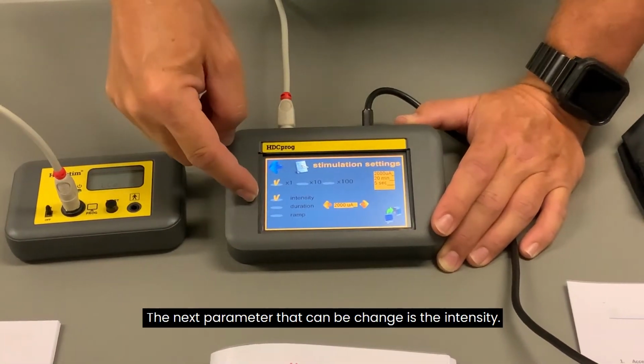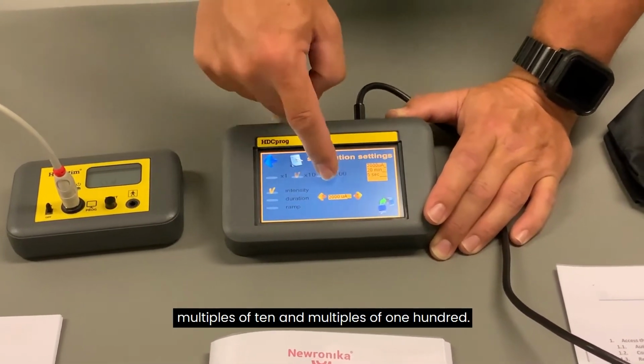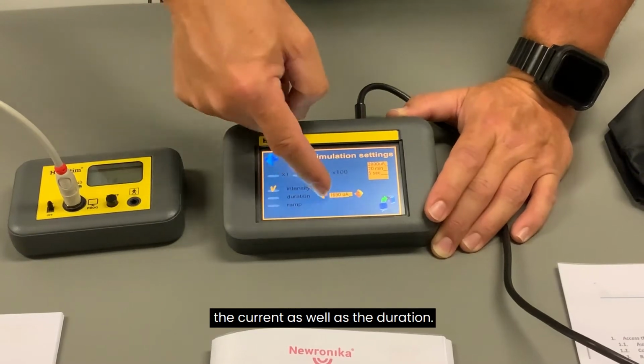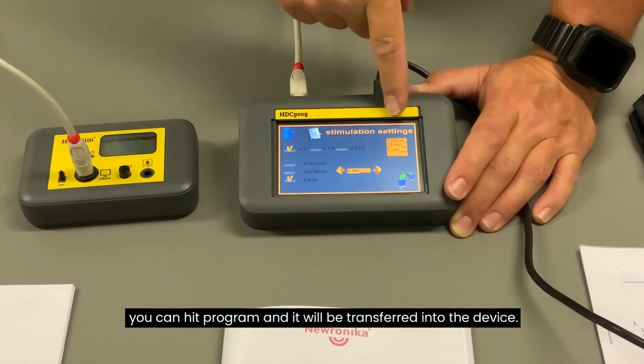The next parameter that can be changed is the intensity. It can be changed in single values, multiples of 10 and multiples of 100. Underneath this section you can increase and decrease the current as well as the duration. Once you have the correct settings, you can hit program and it will be transferred into the device.